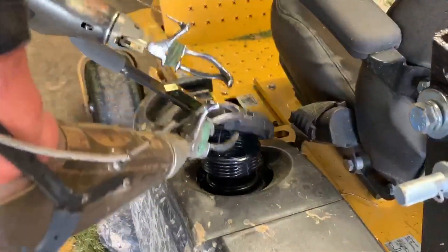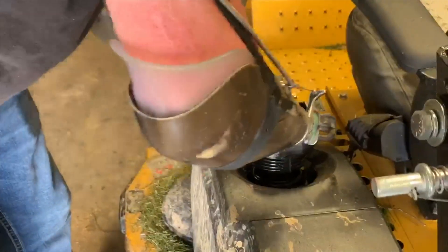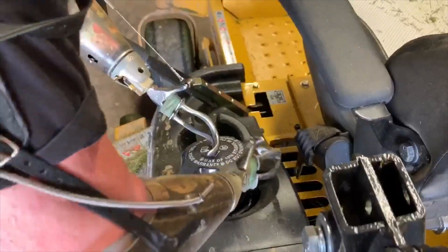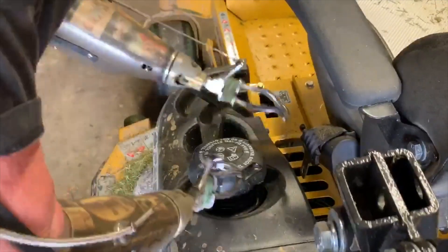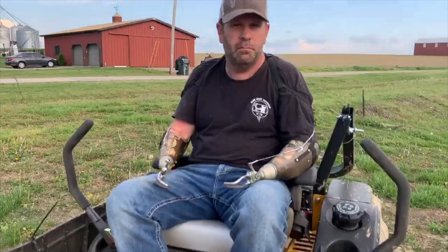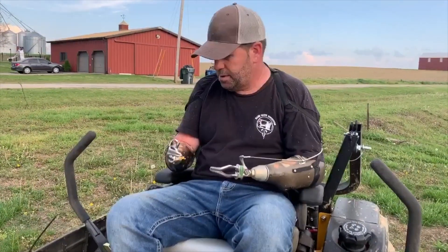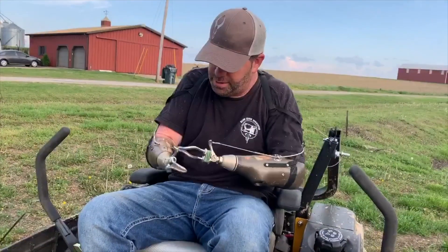To put it back on, just set it in place, turn it backwards, and get it lined up. I just got done mowing the grass. Anytime I'm mowing or doing outside work, I'm always wearing my body-powered prosthesis. One of the best things on these prostheses that I have is these wrist rotators.